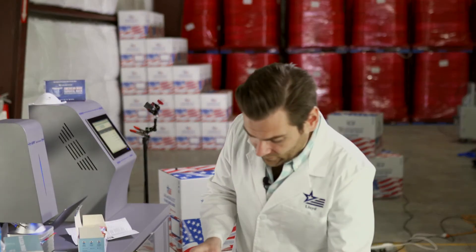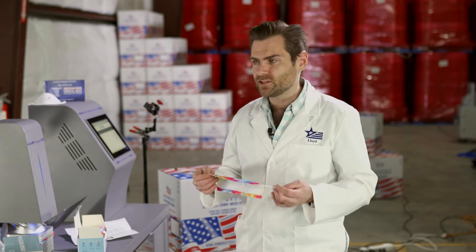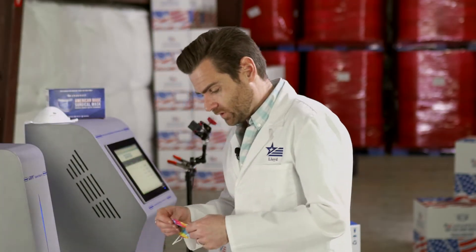We've talked about how we have the same individual packing machine here. It's really thin plastic that they use, and that's why I think this is really good — really quality packaging.